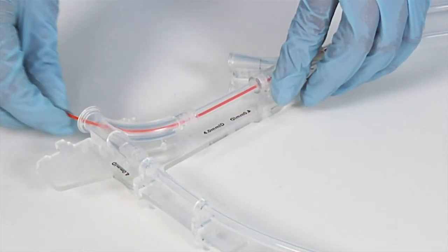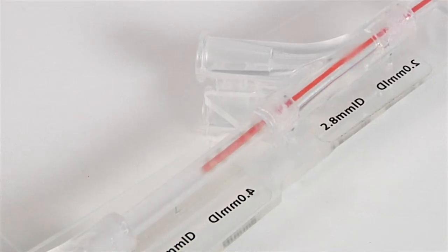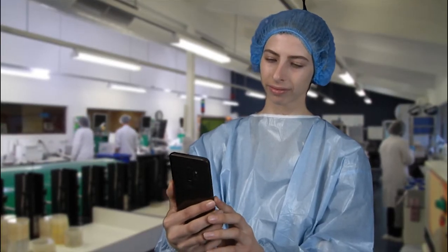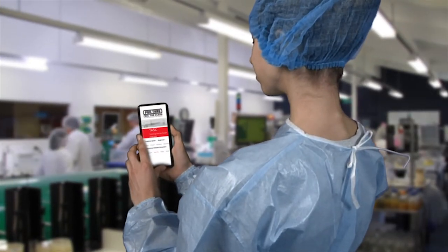This video is a guide to demonstrate the pull-through cleaning brush and how much more effective it is in comparison with other channel cleaning brushes. Comprehensive tutorials and demonstrations on the pull-through cleaning brush are available online. They can be viewed on computers, tablets, and phones.